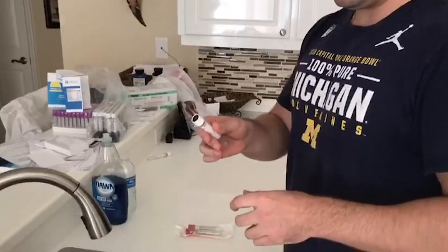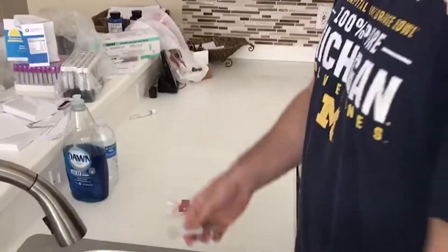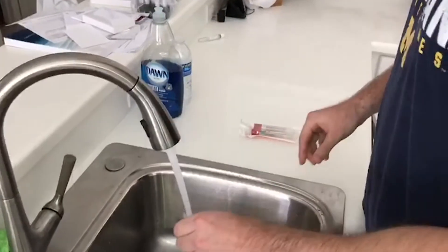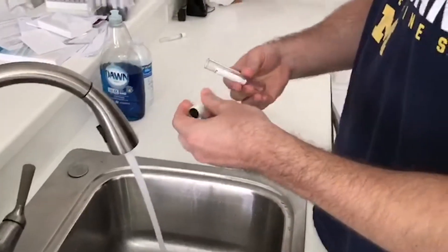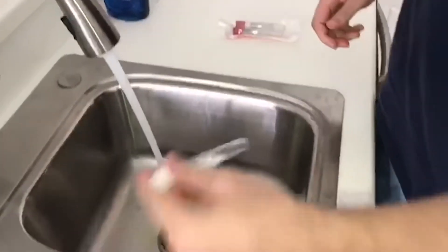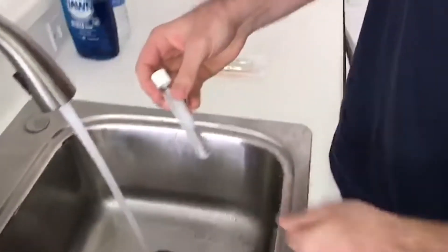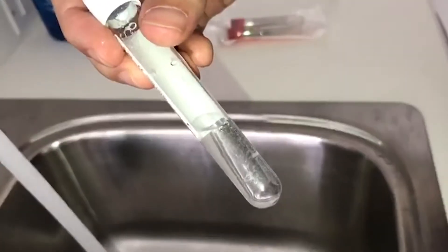Very easy — if you want to figure things out, you can just pop the lids and you can hear the vacuum. Then just add a tiny little bit of water inside there, and put the lid back on.